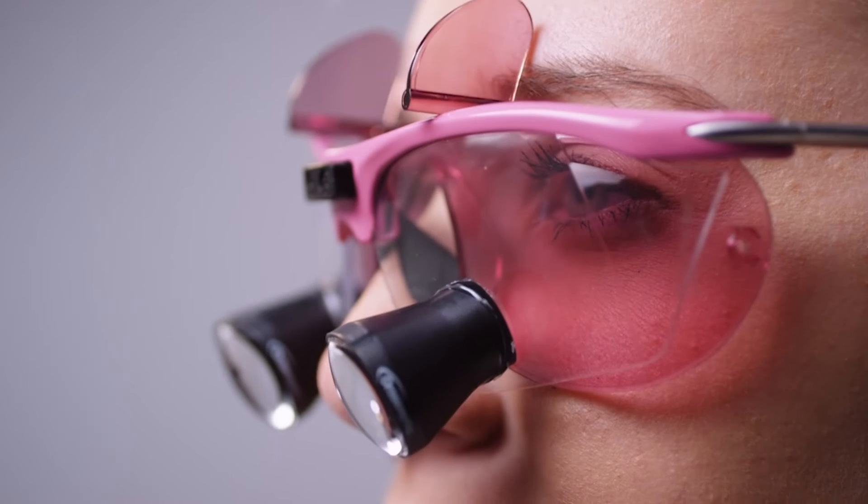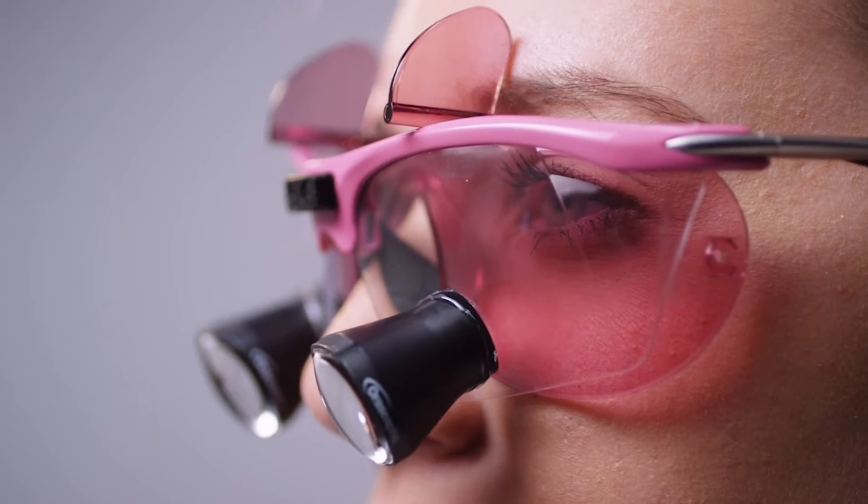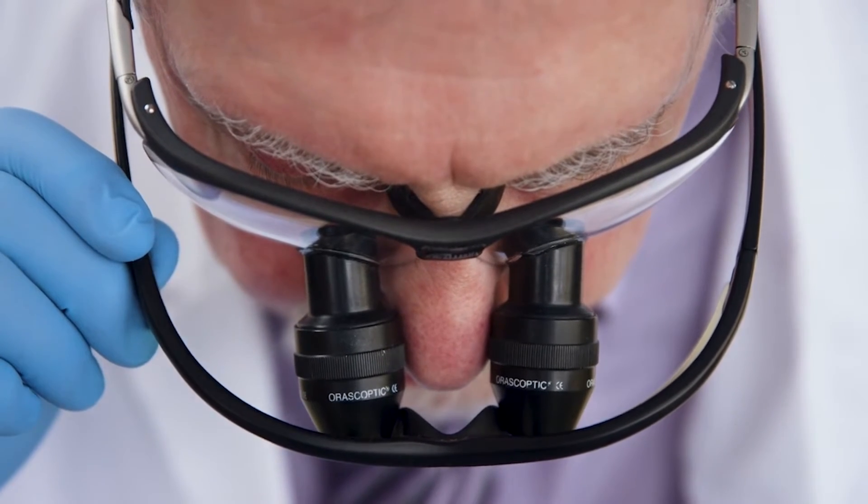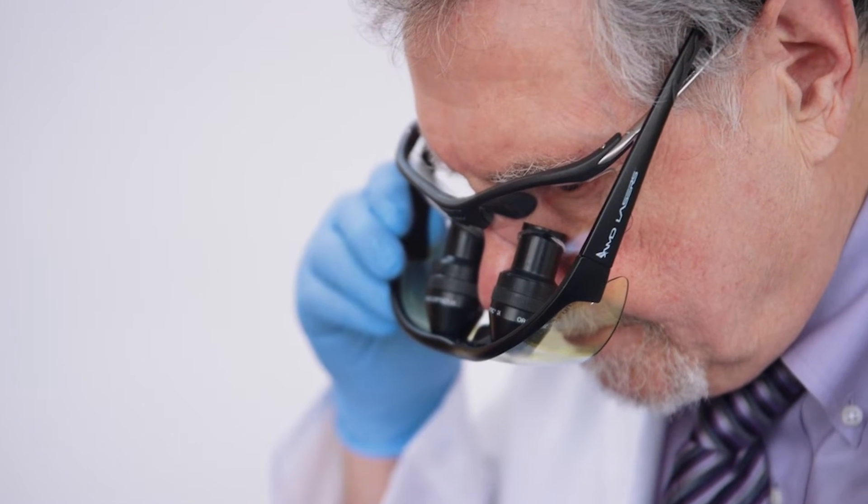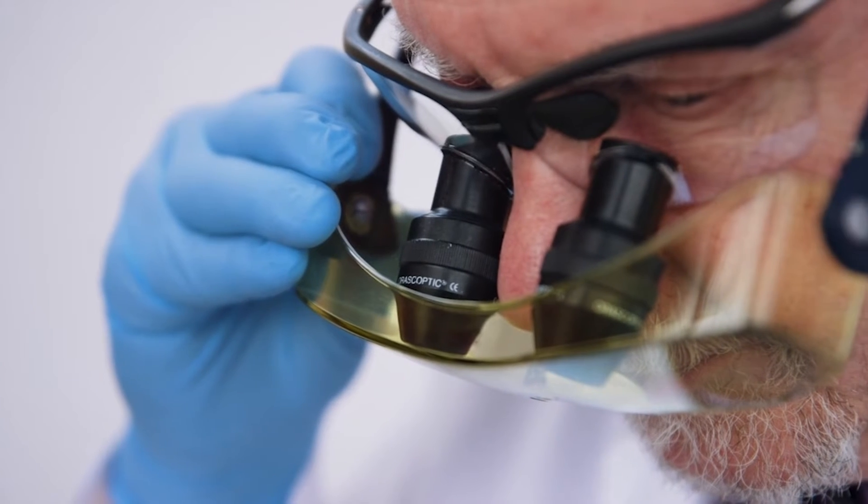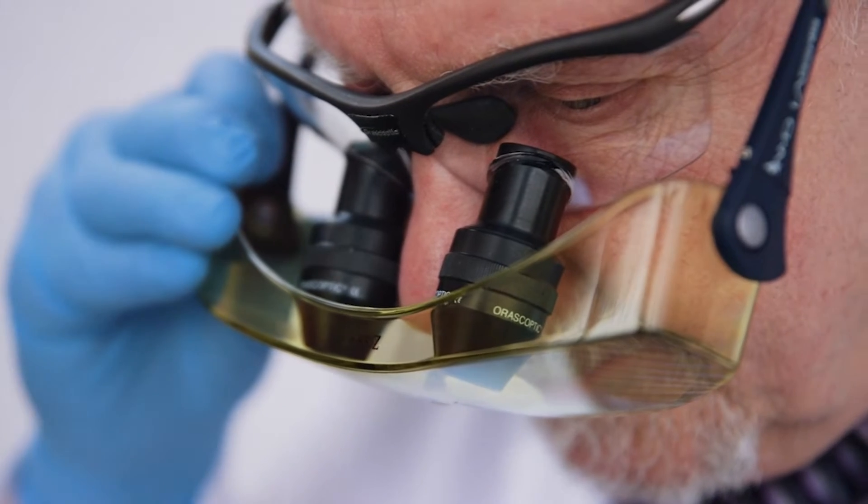We as dentists need proper eye protection. I spoke with various colleagues who said that they either have to hold the safety glasses in place or the goggles in place and work their laser with one hand, or they don't use eye protection at all. I was surprised by the number of people that just don't use eye protection.